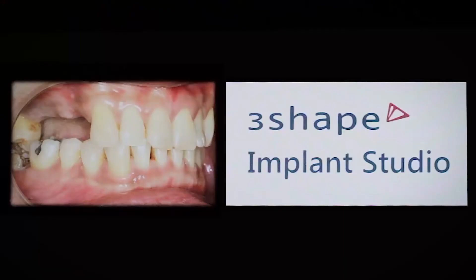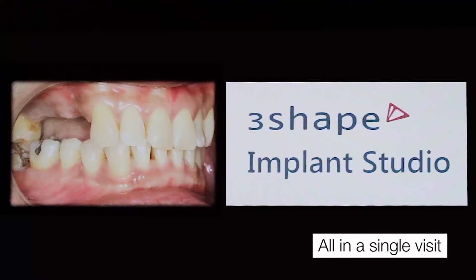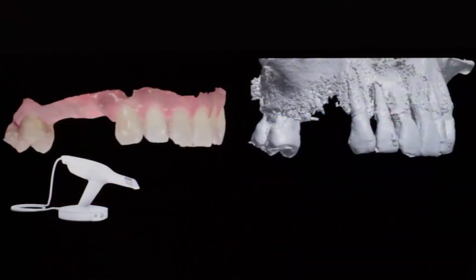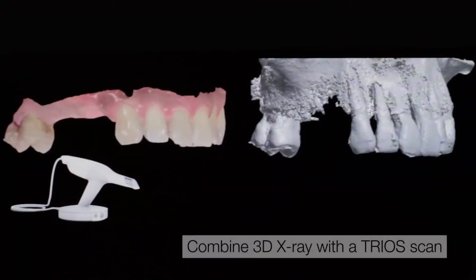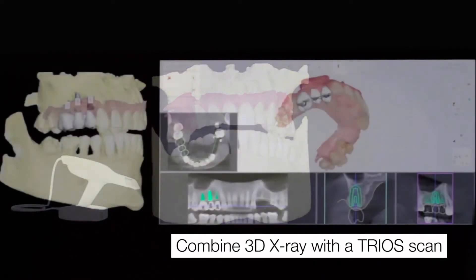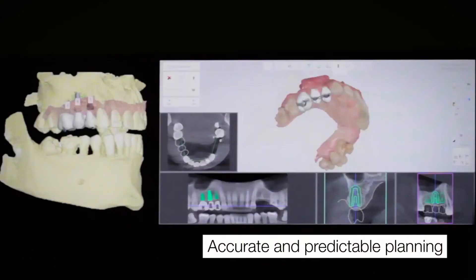One of our favorite cases using Implant Studio was a case where we were able to provide our patient a very predictable, safe, and efficient form of implant treatment, all done the same day. We're able to take the patient's preoperative scan as well as the patient's 3D X-ray and very efficiently combine that together within Implant Studio, allowing us to accurately combine the different data sets to make sure that the virtual implant planning is very accurate as well as very predictable.